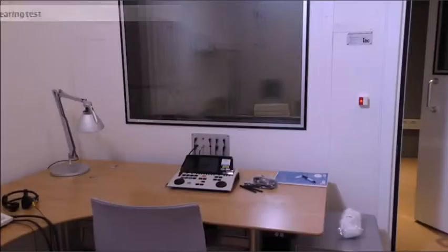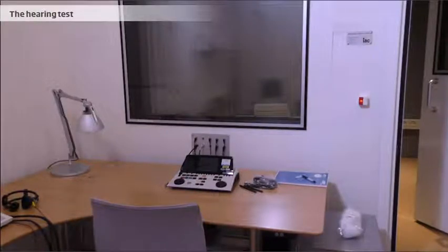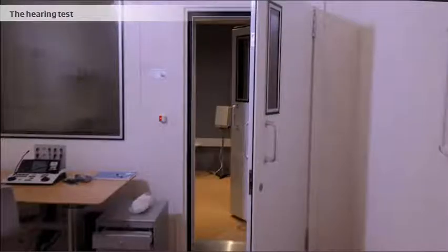In many clinics, the hearing test takes place in a sound booth, which is a special acoustically treated room built to exclude the most powerful sounds from the surroundings. This ensures that the measurements can be considered fairly precise.